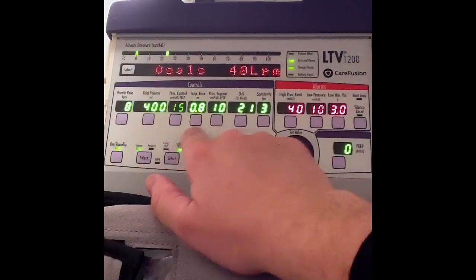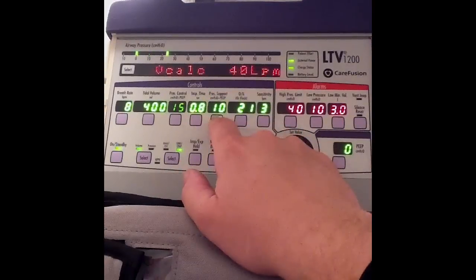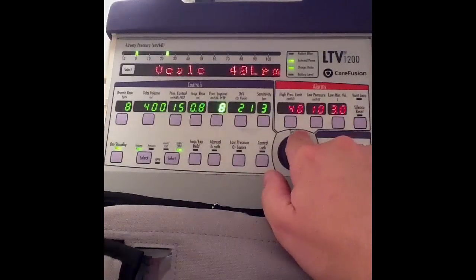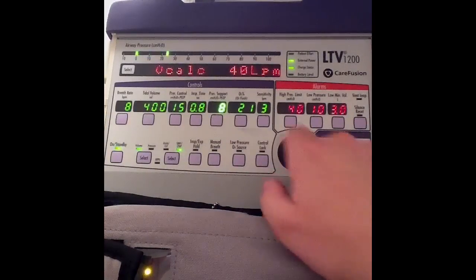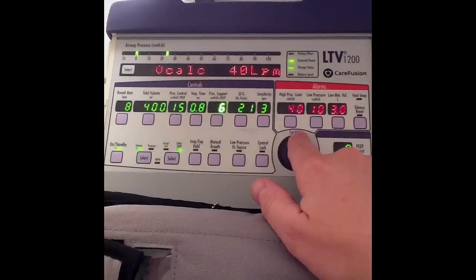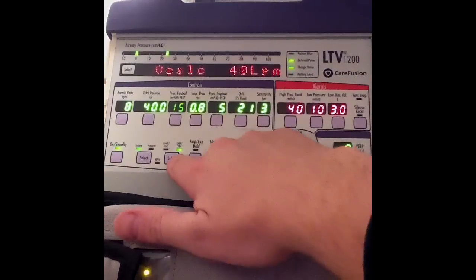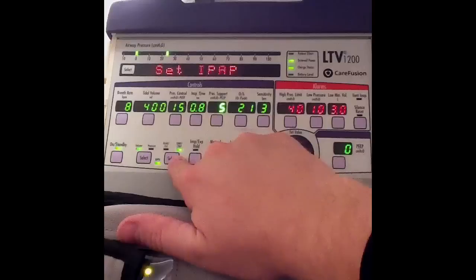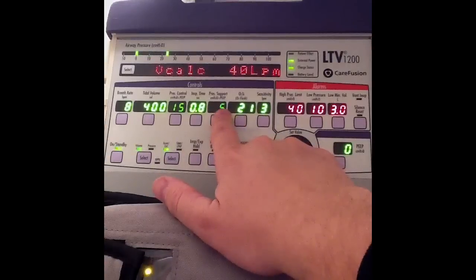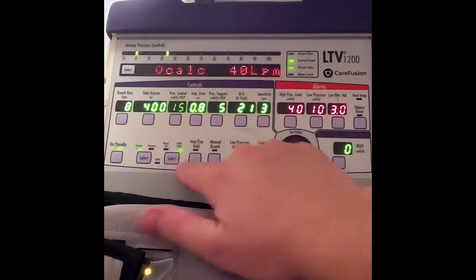You can see that pressure support lit up, because now that I'm in SIMV my patient can take spontaneous breaths. I can give them pressure support, so I'll select that and set it to 5. Now going back into assist control, you can see the pressure support is now dim because I don't need it anymore. We'll keep it in SIMV for now.